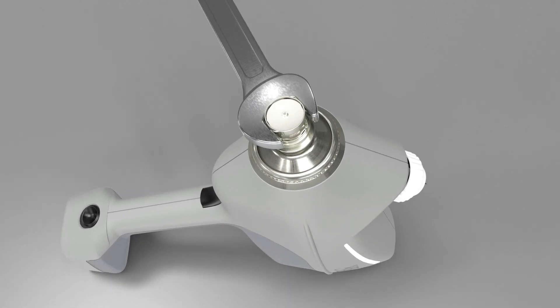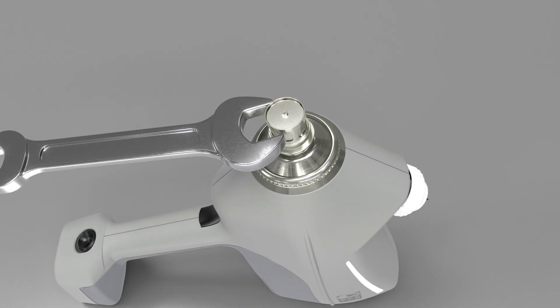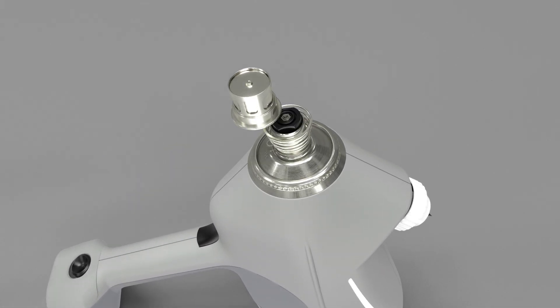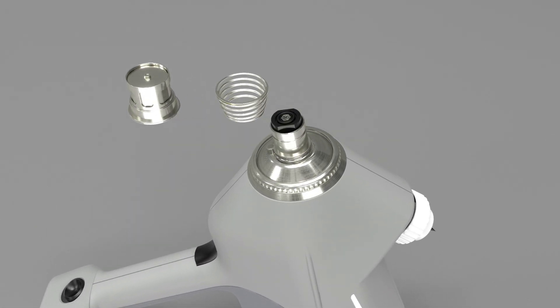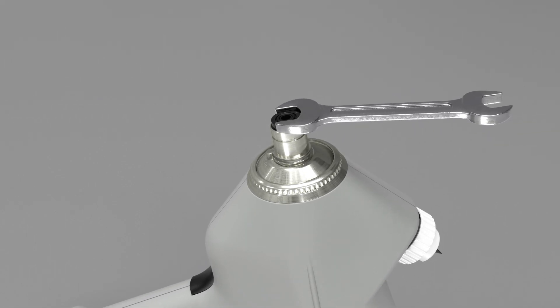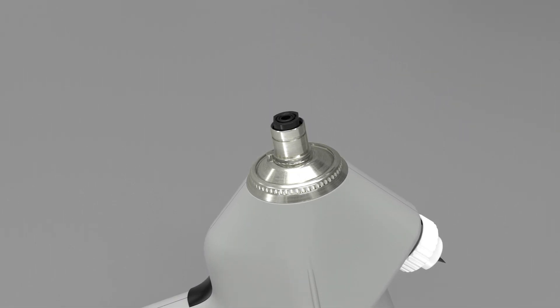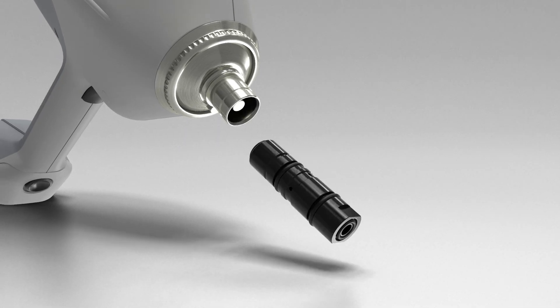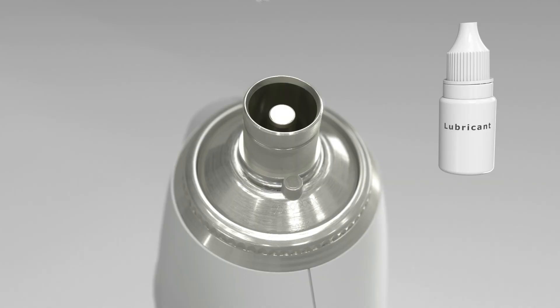Therefore, the only necessary service step is to replace the old cylinder by a new spare cylinder using common tools. This can easily be done at the farm within one to two minutes.